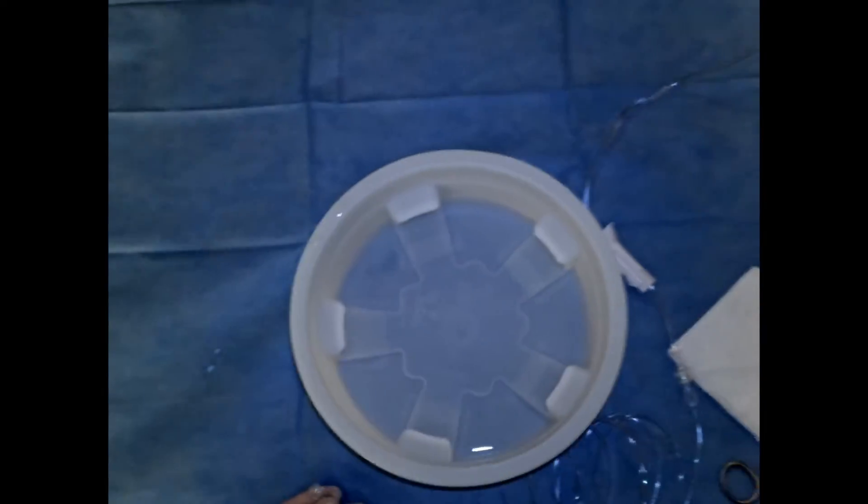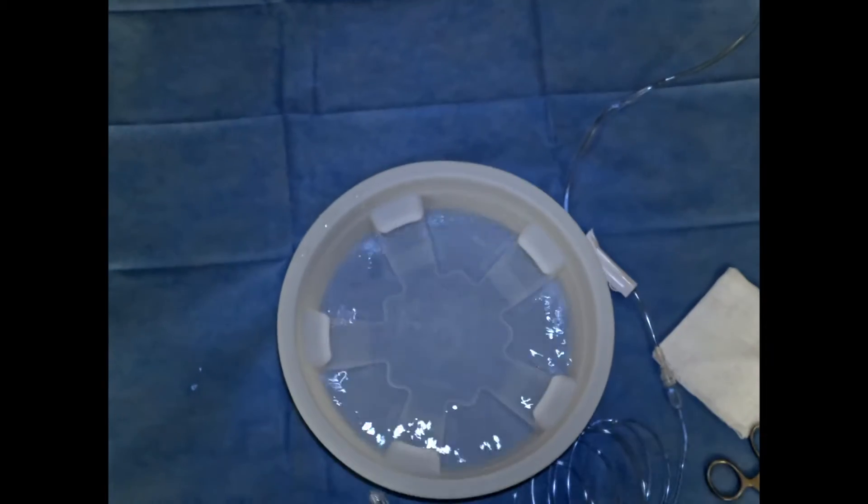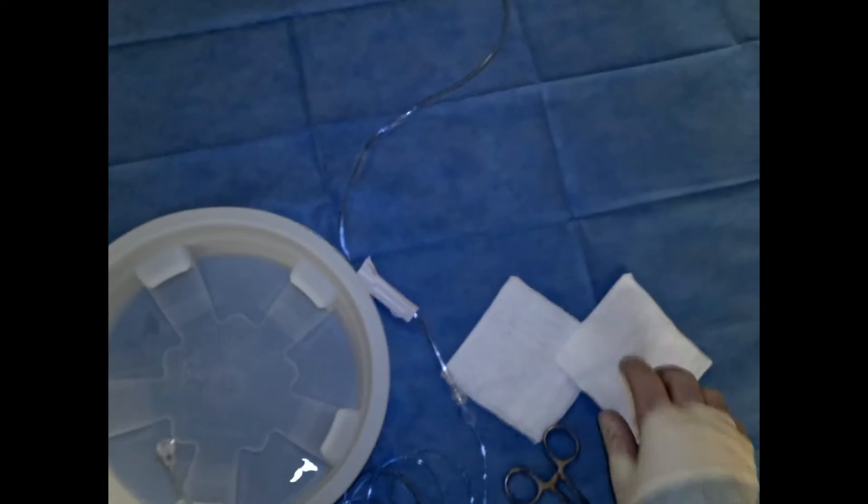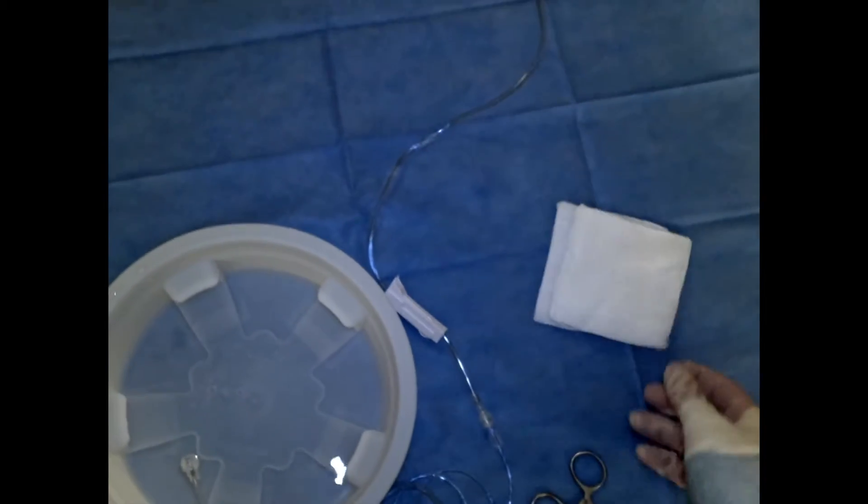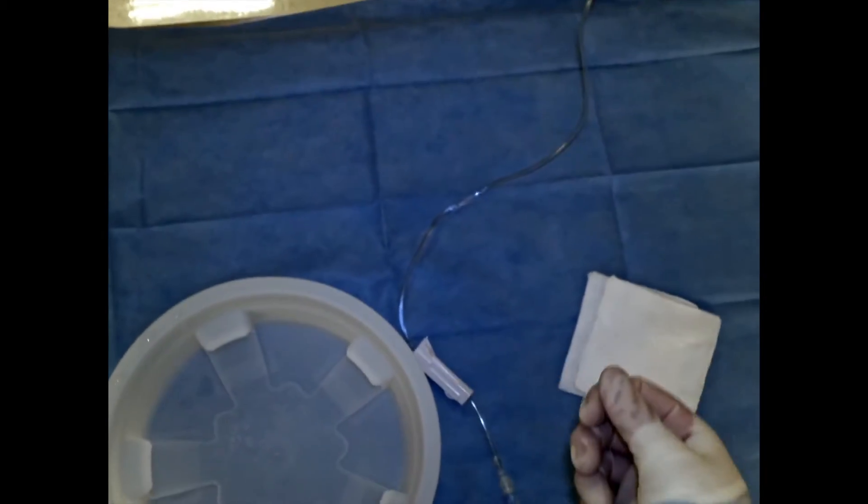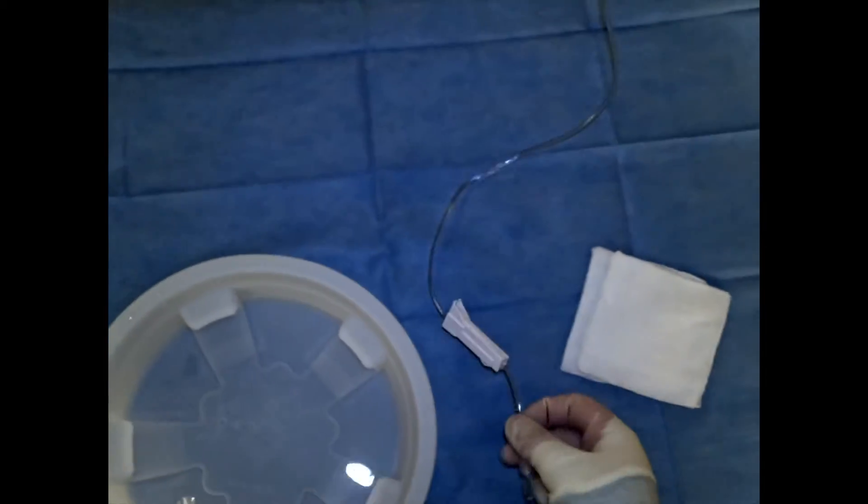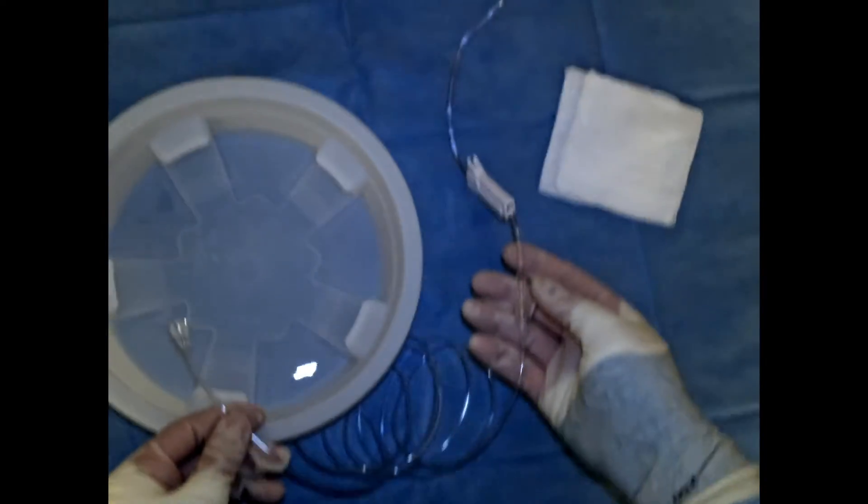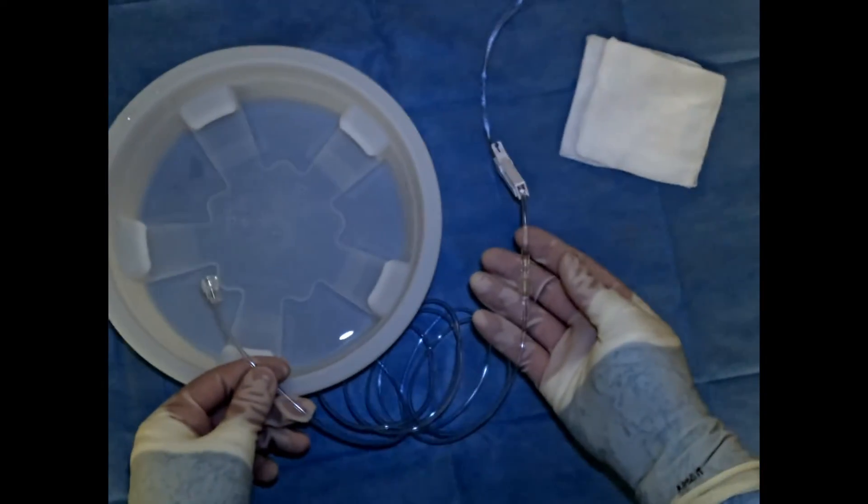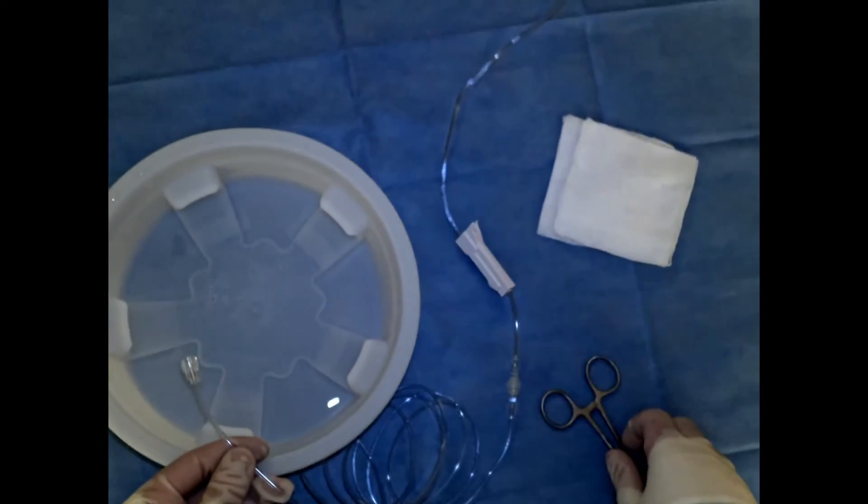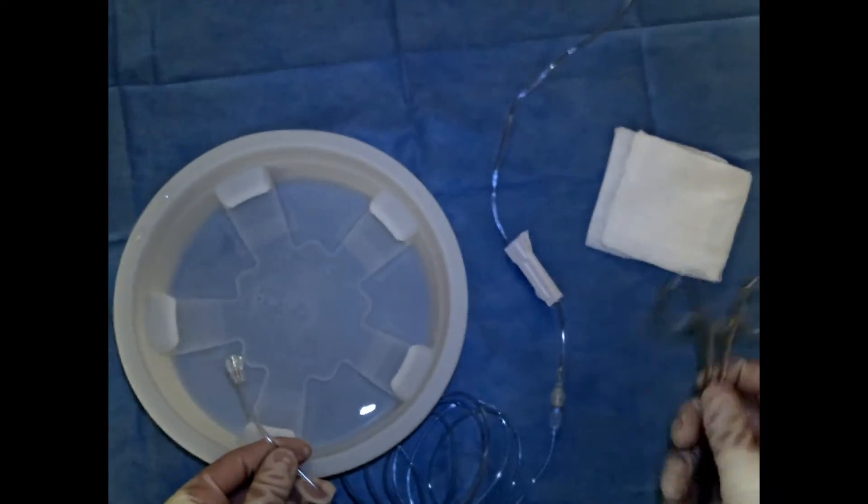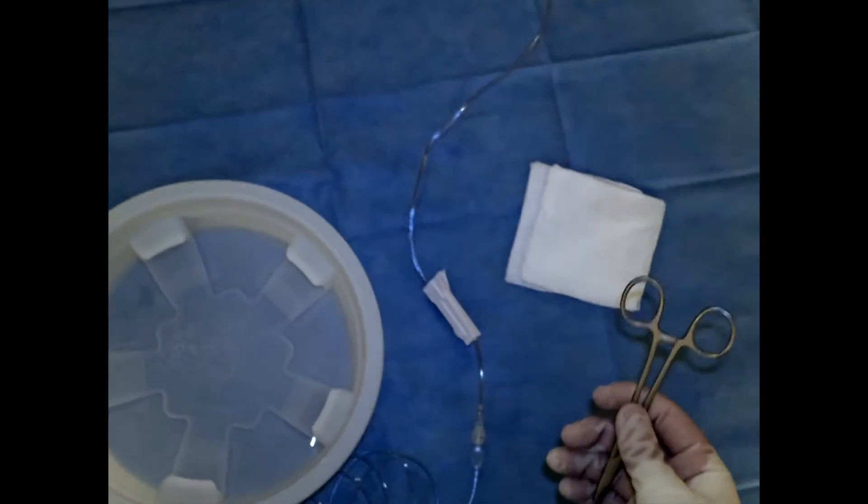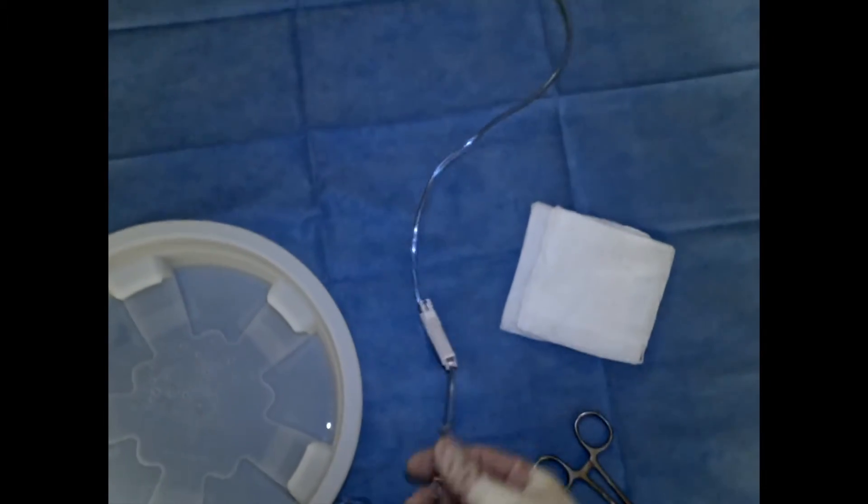Additionally, you want to have a few things at your disposal: a water bowl so that you can flush the line into the bowl without getting everything wet, a couple 4x4s, which are useful mainly because as you're flushing this drip line, water droplets can collect on the line itself and they can look like air bubbles, but in reality it's just water droplets. This helps us resolve if there's actually an air bubble in the system.